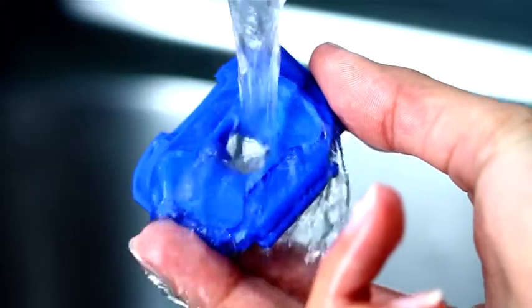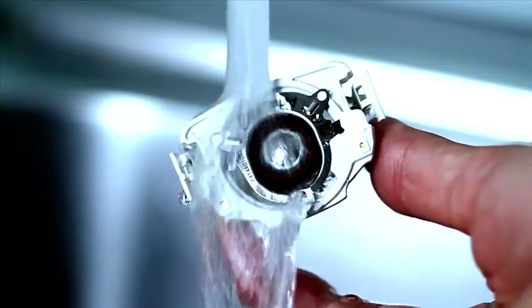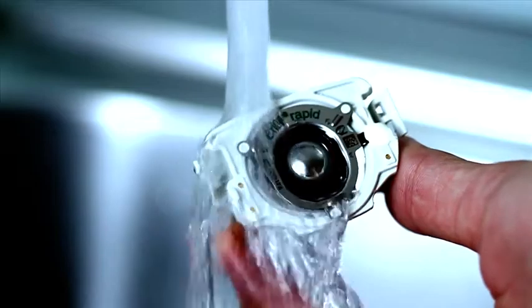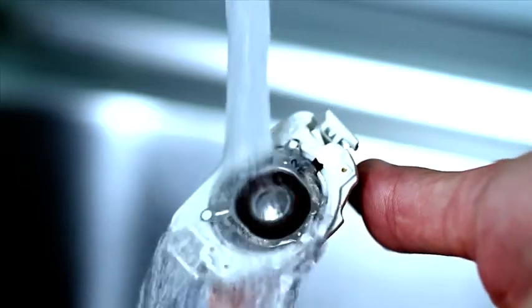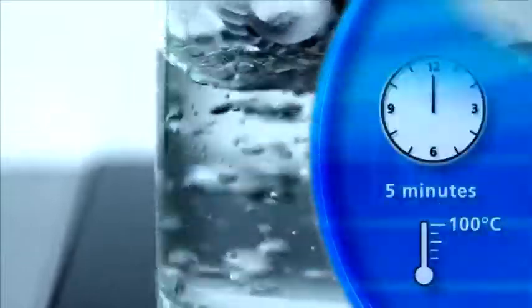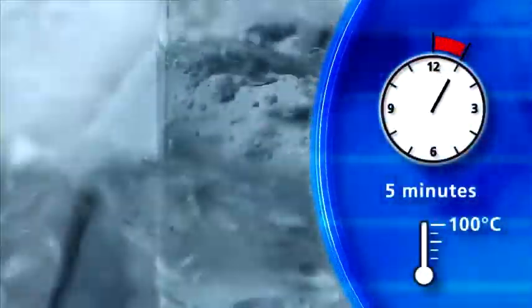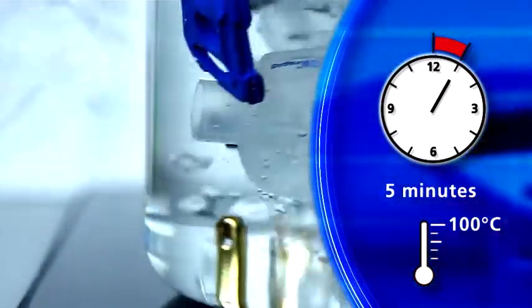It is very easy to disinfect the disassembled parts of the nebulizer handset. To do this, you can use a standard commercial steam disinfector. Alternatively, you can place the individual parts and the aerosol head in boiling water for five minutes. Please only use distilled water for this.